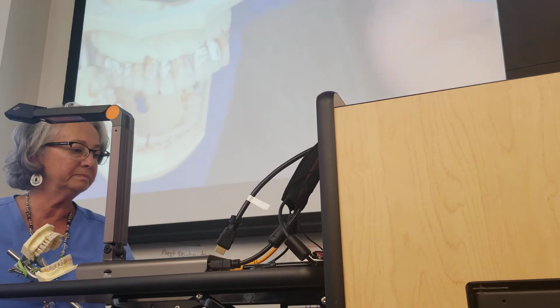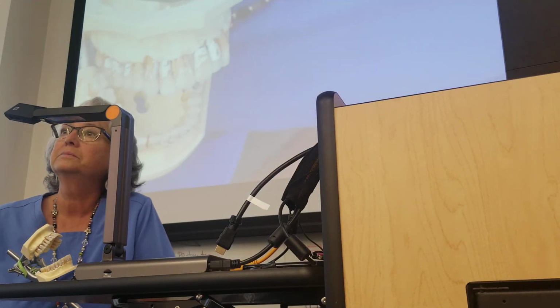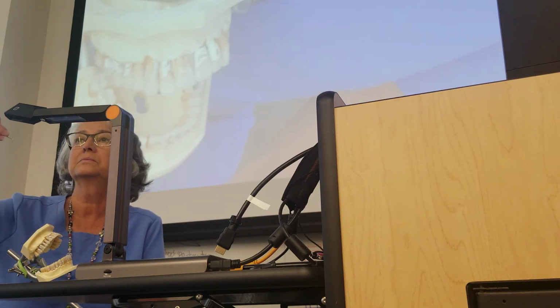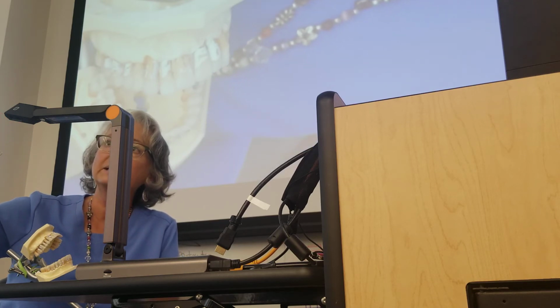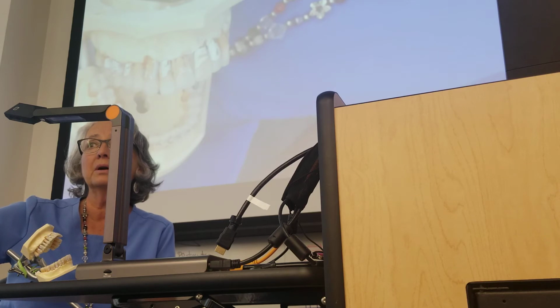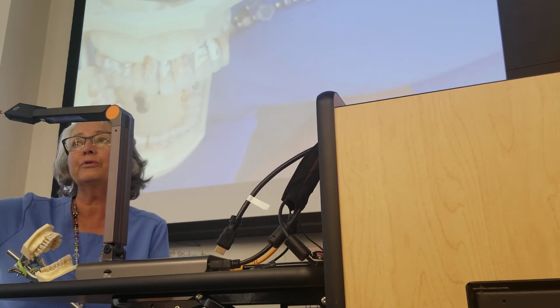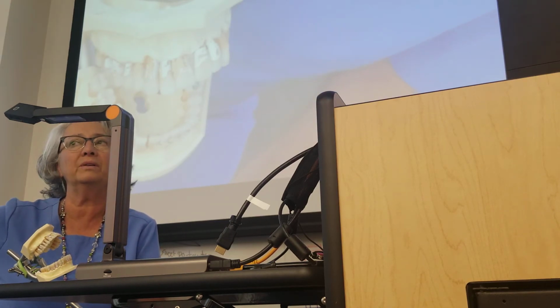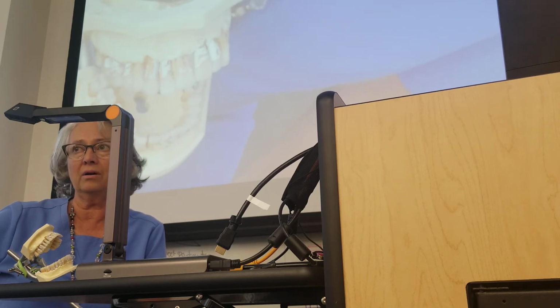How are we doing? I have a question for the horizontal. You said it's the outer surface, but does it matter if you use the 5 end or the 6 end? It depends on where you're at. For the anterior, no, don't worry about the 5 or 6. That's not going to tell you what you need to know. You need to know where the outer and the inner edge are.